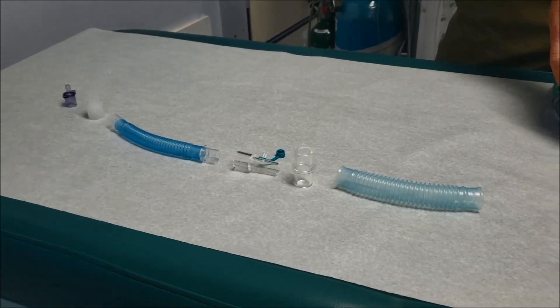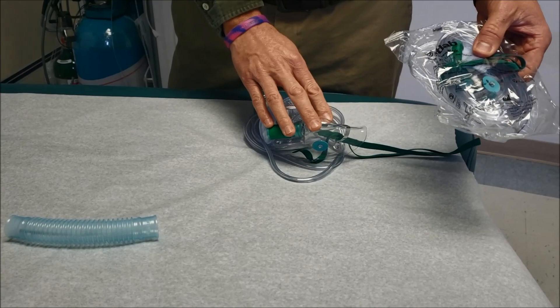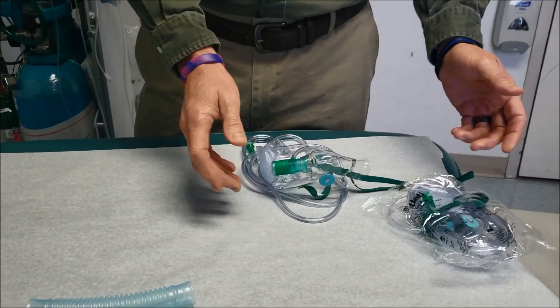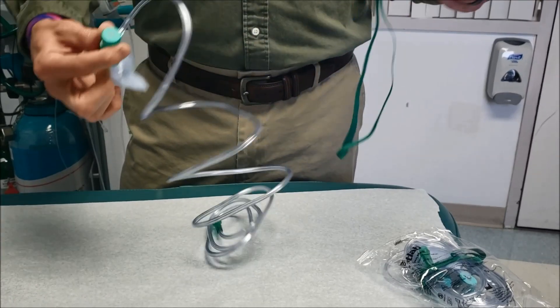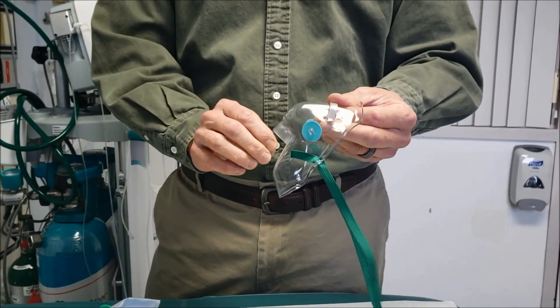Just real quick, the equipment. We use a standard non-rebreather that we carry here. This is that same non-rebreather out of the package. Remove the actual bag part and the tubing so you're left with just the mask.